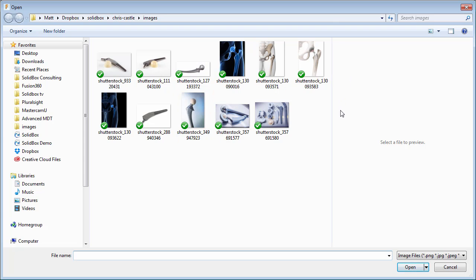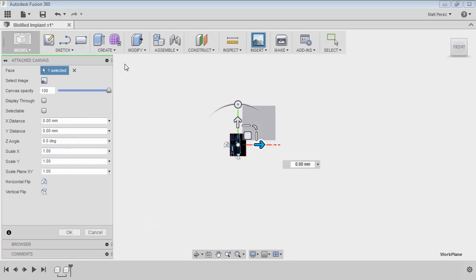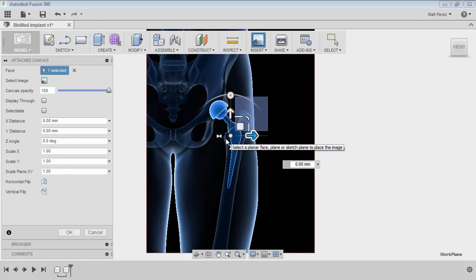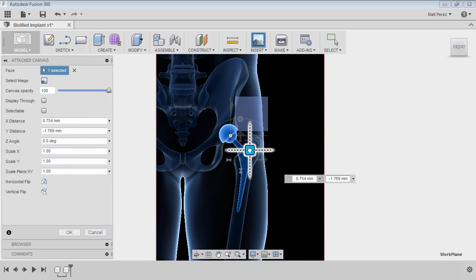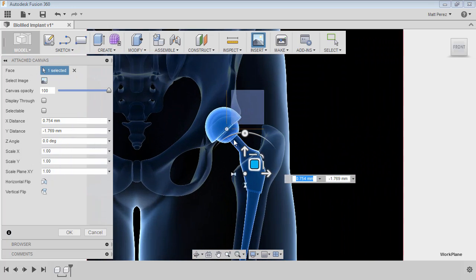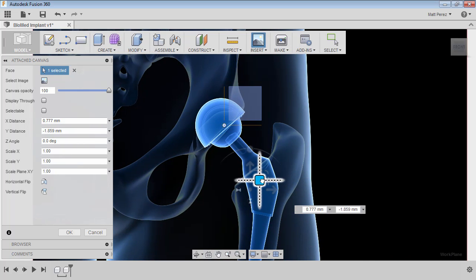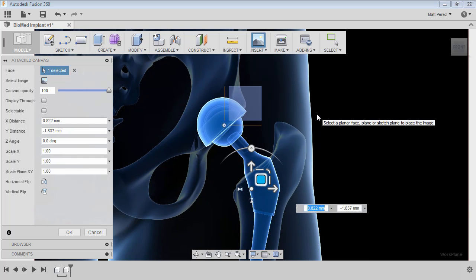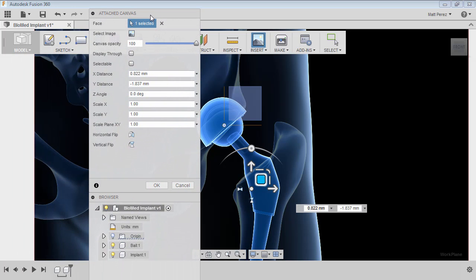So we're going to start by using the hip implant image. We're going to insert this image. And you'll notice that by default, it's just kind of floating around down here. It's not located anywhere, but that's okay. We're going to move it around so that the center of the ball, as we zoom in, is roughly located at the origin. That is going to be the basis for all measurements of this type of file. They're all going to be located at the rotation point—in this case, the axis, the center of the ball and socket.